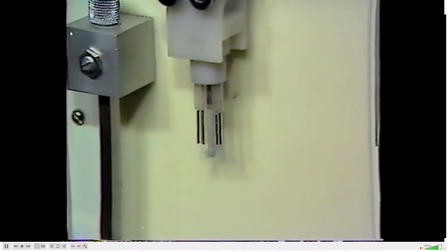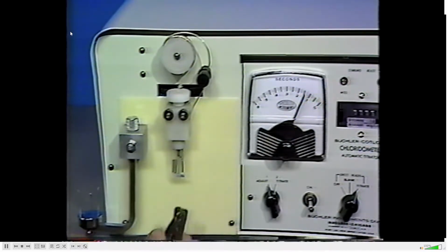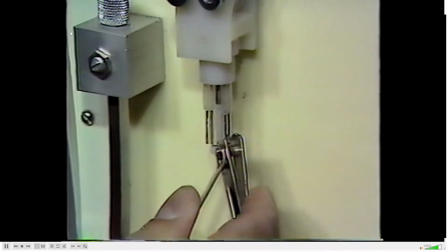It is not necessary to clip the silver wire anode unless it is thinner than a straight pin. Clipping of the soft silver wire is best achieved with a pocket nail clipper.